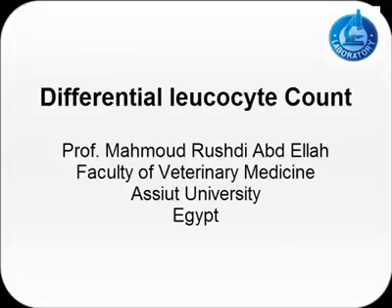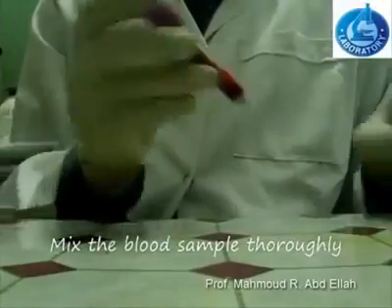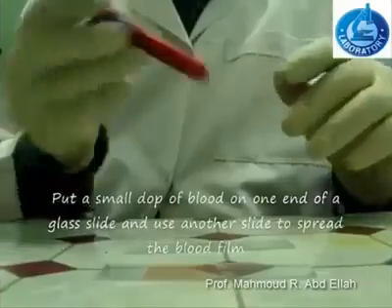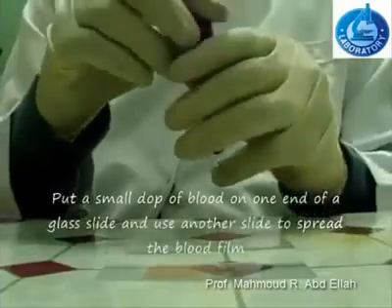Differential leukocyte count, or DLC. The first step in preparation of a slide for differential leukocyte count is to mix the blood sample gently.